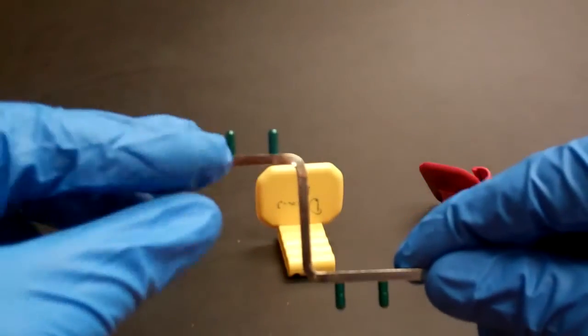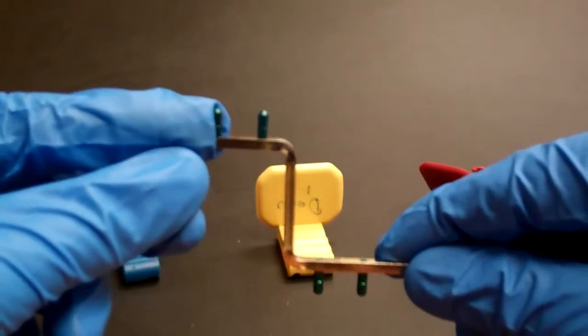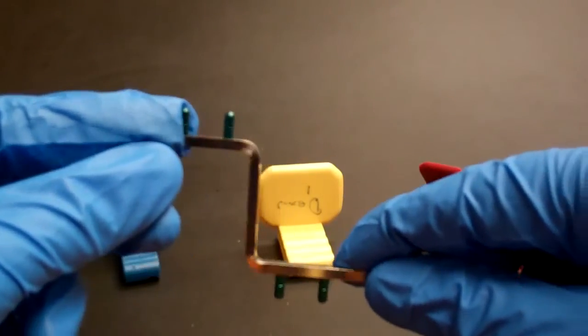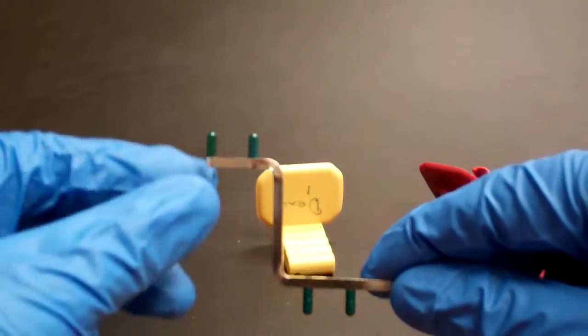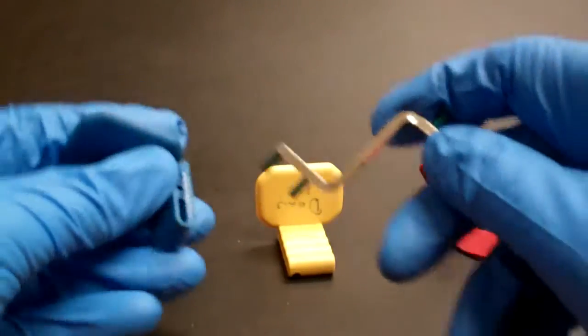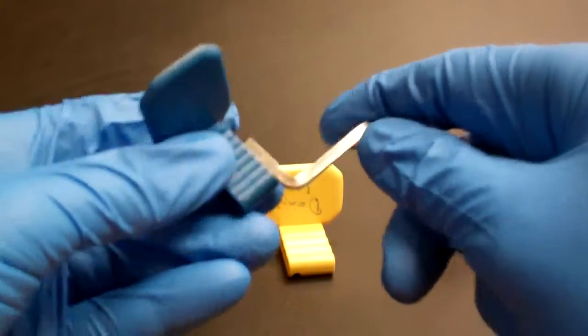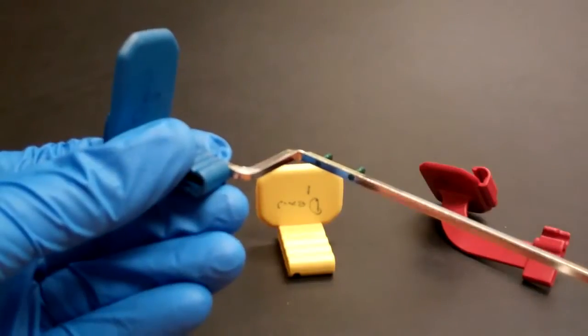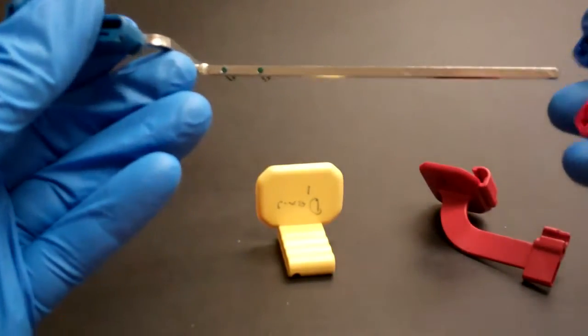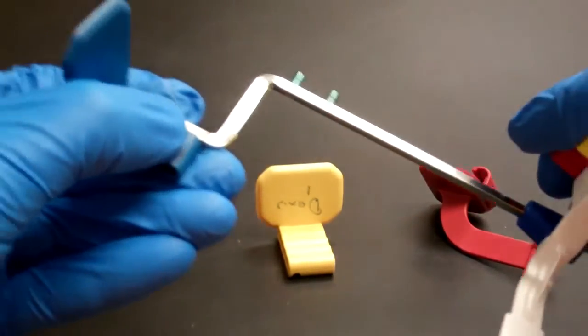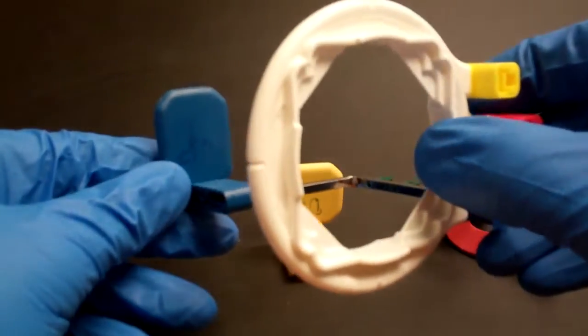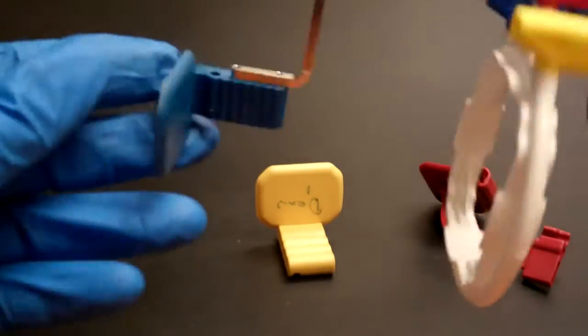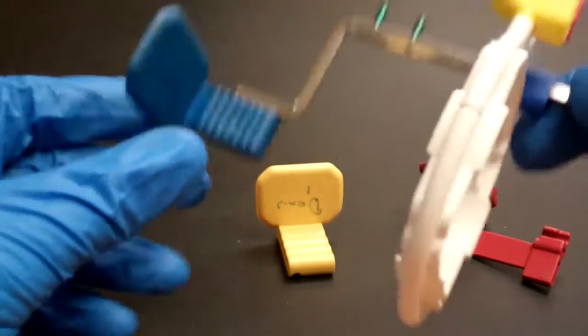The key to this product is the fact that it has some specially sized pins that are designed for compatibility with these bite blocks. If we were to show this with the anterior, we can just put those pins on there and this is how it would look in the anterior configuration. This would be an upper and you could just flip it over to do the lower.